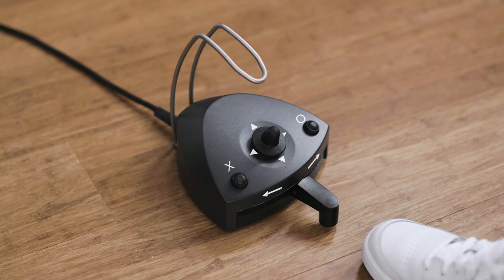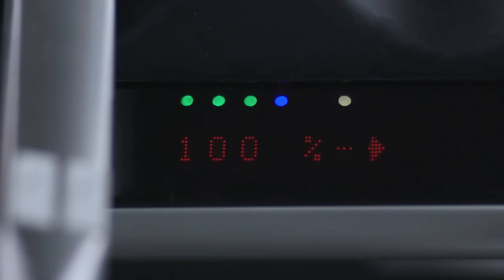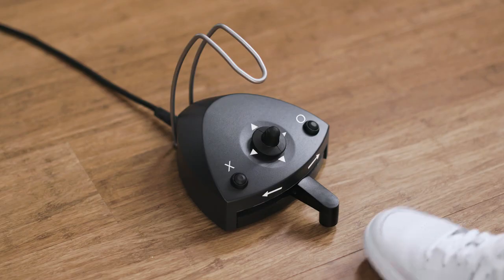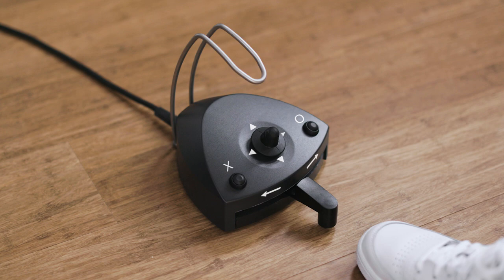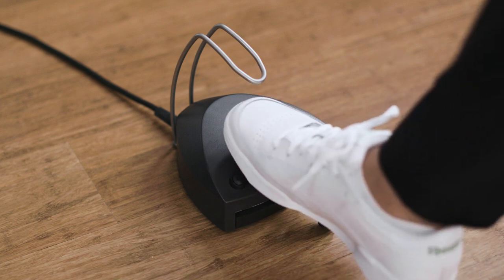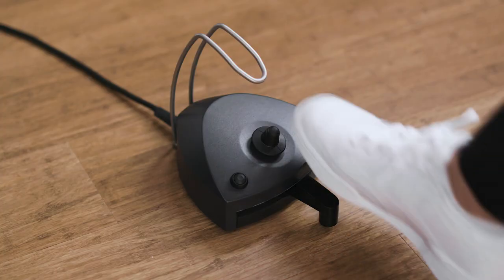The drive air will decrease when you move the joystick south. Change the spray selection — water and air, or no spray — by tapping on the left button X. Enable or disable the automatic chip blow by tapping on the right button O. You can choose between three levels of spray water. The amount of water will increase when you move the joystick east, and will decrease when you move the joystick west.